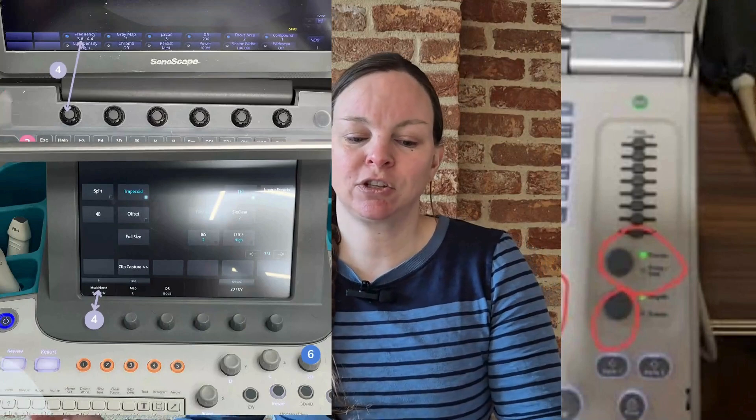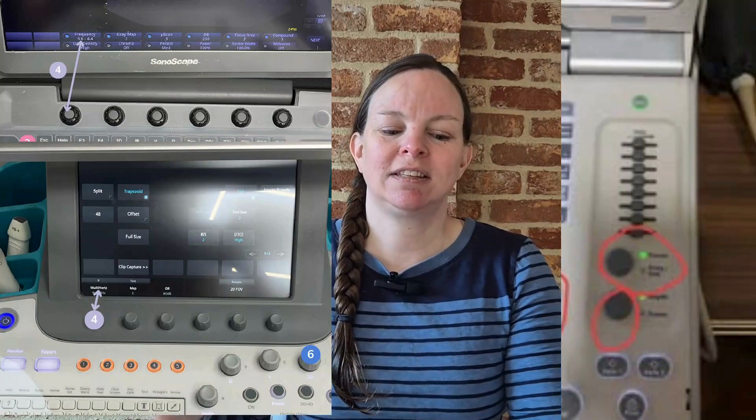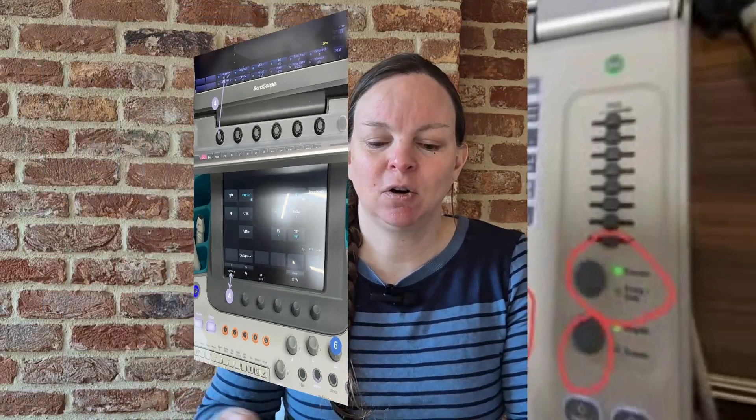For frequency, look for a button or setting labeled 'frequency' or 'freq.' It might be on the main screen or buried under image settings or probe options. You'll either see frequency names like 'res,' 'gen,' 'pen,' or exact numbers in megahertz. Some machines hide this setting more than they should, but it's worth digging around to find it. Once you do, don't just leave it alone — get into the habit of adjusting it based on the structure and the patient in front of you. It only takes a few seconds and the difference in image quality is often immediate.